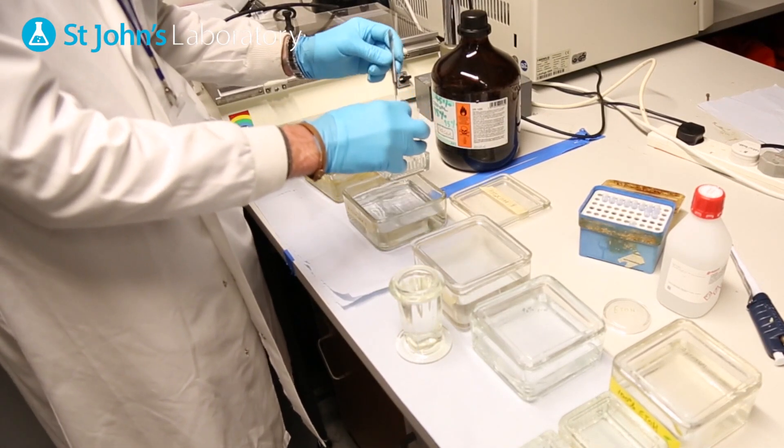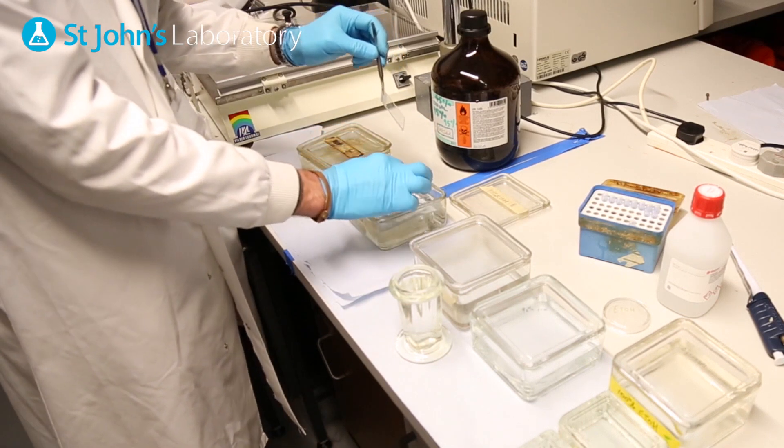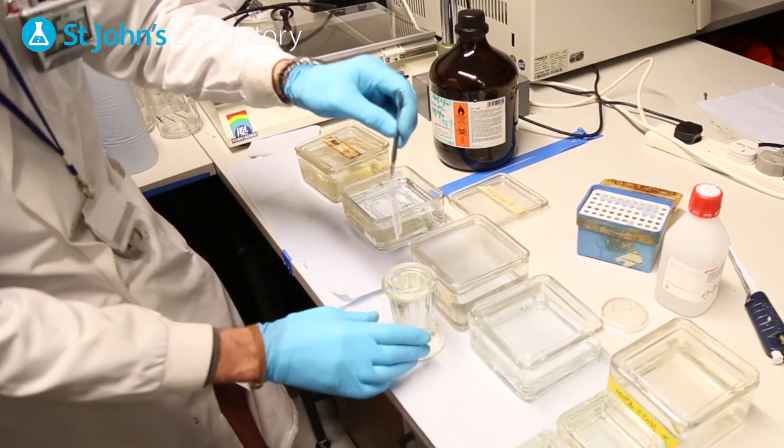Transfer your tissue section to absolute alcohol, minimizing exposure with the air to prevent dehydration of the cells.